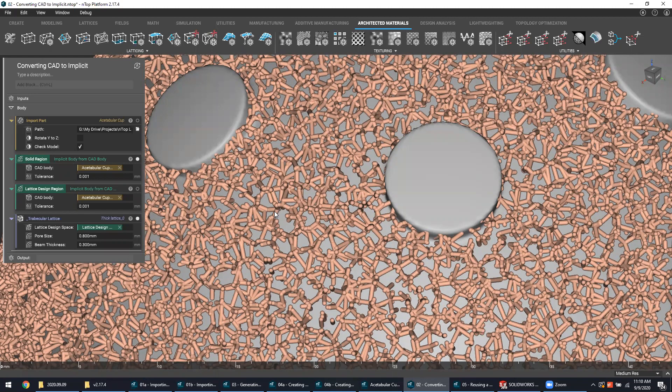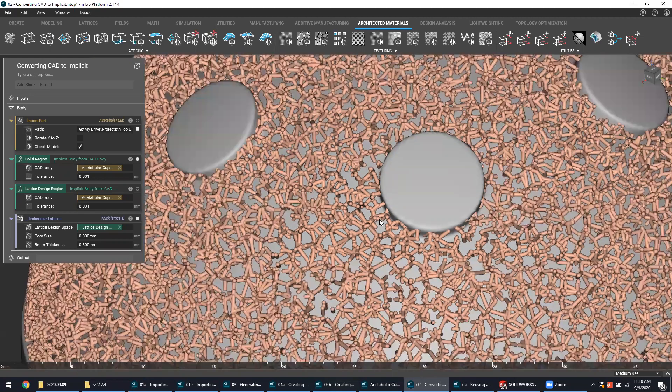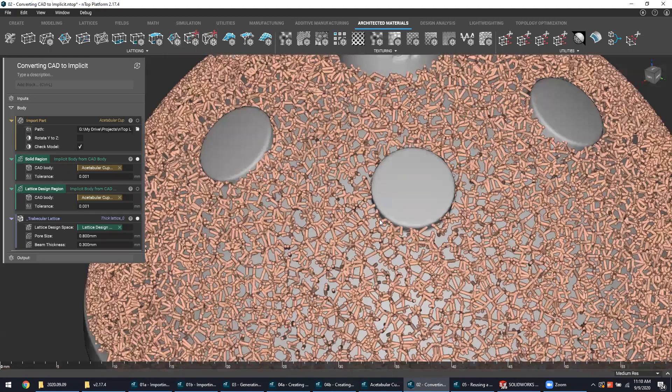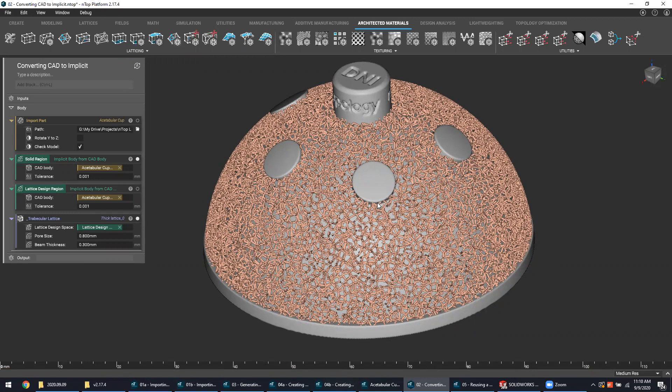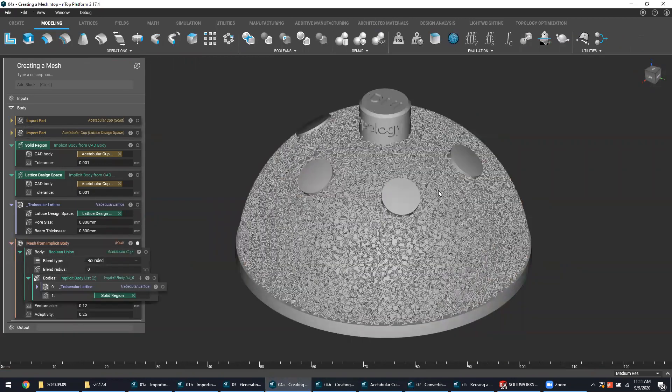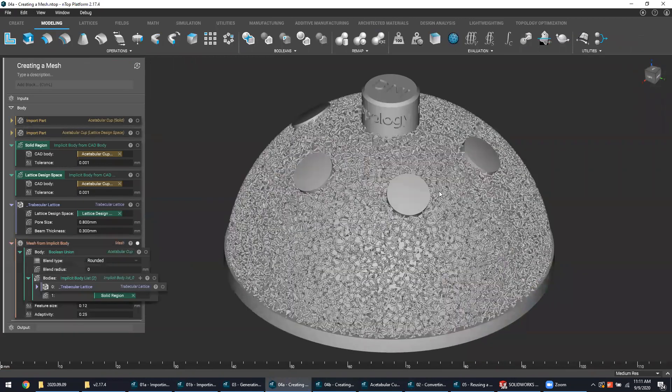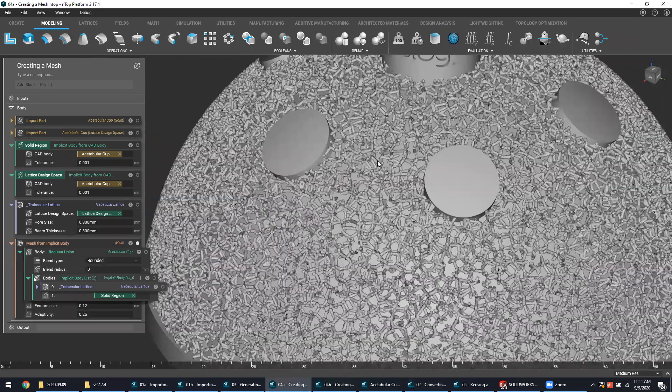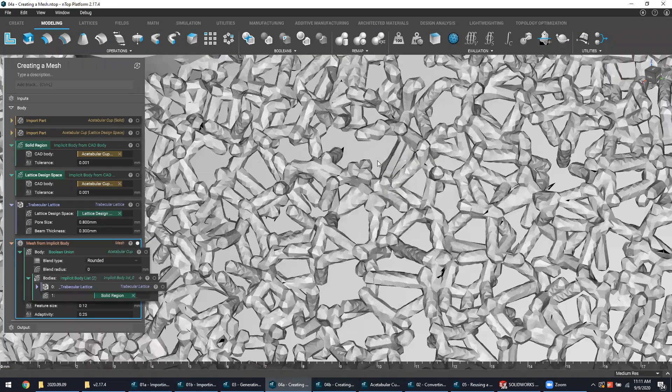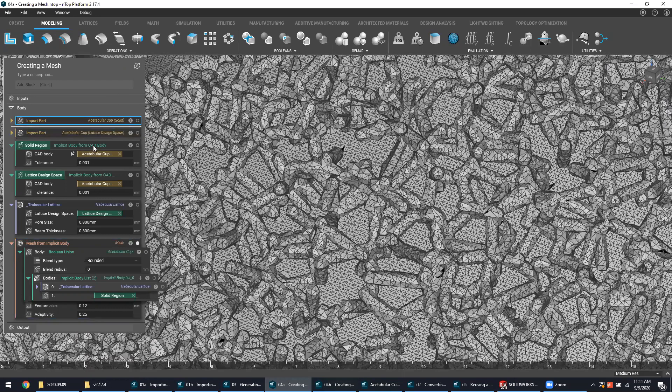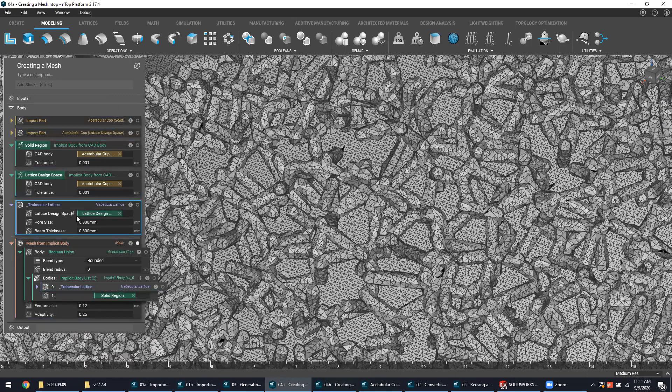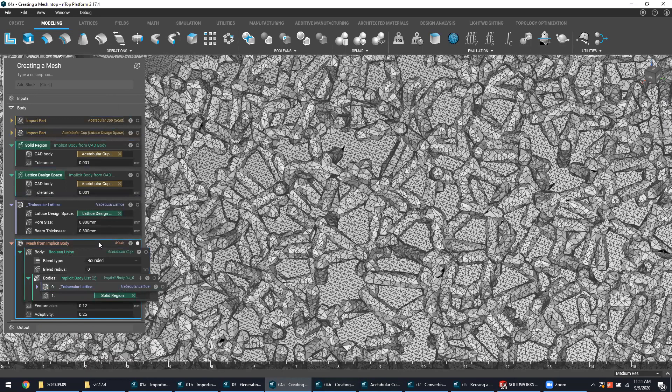The fourth and final step is to combine your lattice and solid region together and create a mesh that can be read by your preferred additive manufacturing machine or 3D printer. This normally can take a bit of time, ranging from a few seconds to a few minutes, but for the sake of brevity, I have the regions already combined and that mesh already created. If I zoom in super quick, I can get an idea of what my mesh actually looks like in terms of triangle size and mesh quality. If I look over to the left, we can see a color-coded flow representing the steps we've taken from CAD bodies to implicit bodies to creating a lattice, combining it using a Boolean operation, and ultimately generating a mesh from that.